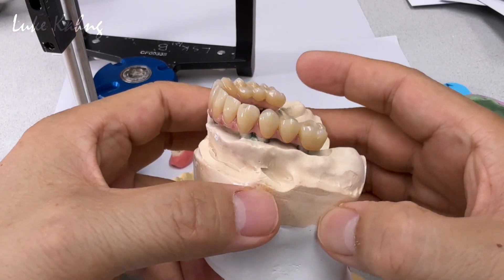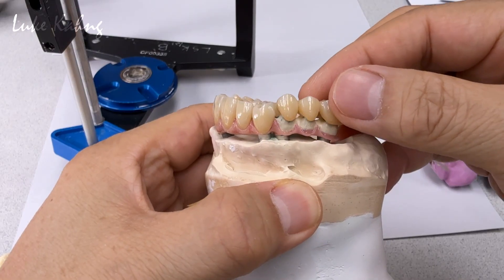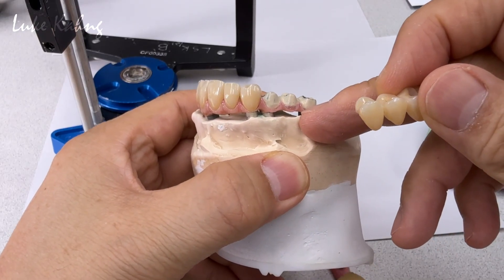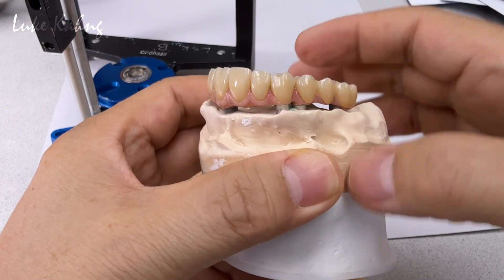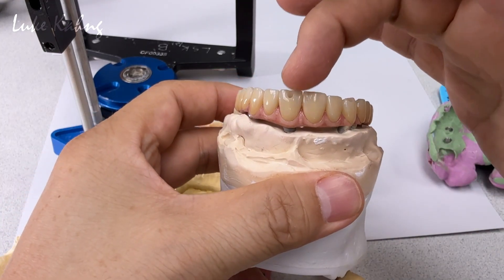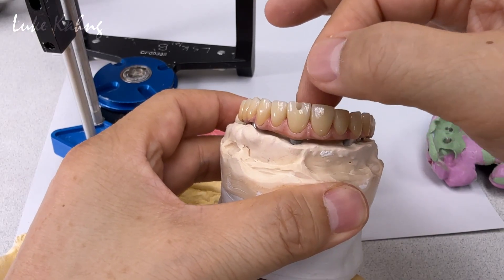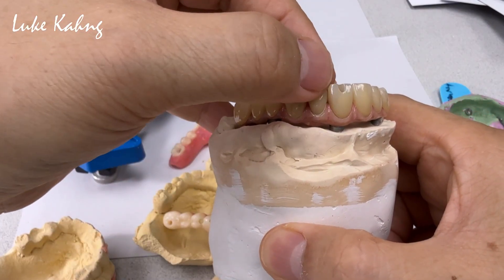It also has great cleansability and looks more individual. This restoration is ceramic — we made it with chrome-cobalt, not titanium. A lot of people use titanium and put composite on top, but ceramic is really tough. We're going to cement on top of this. The margin integrity here is our art, and we don't use any composite — only cement between teeth.